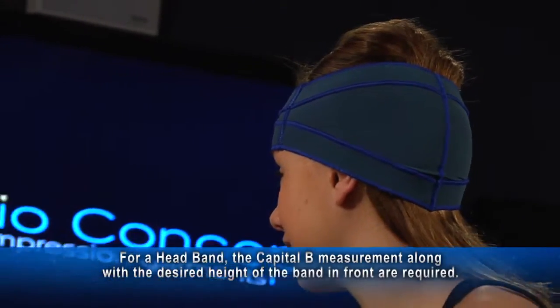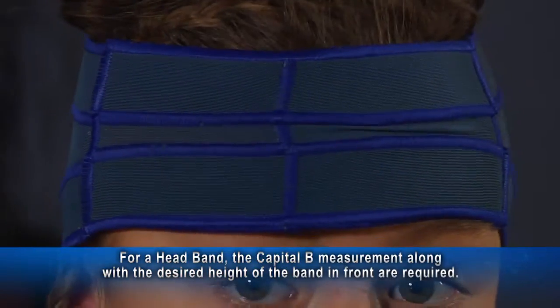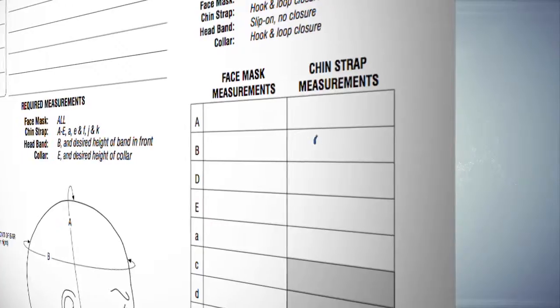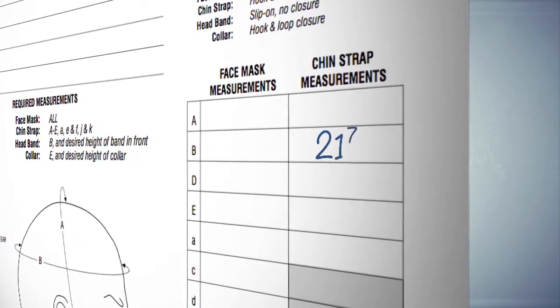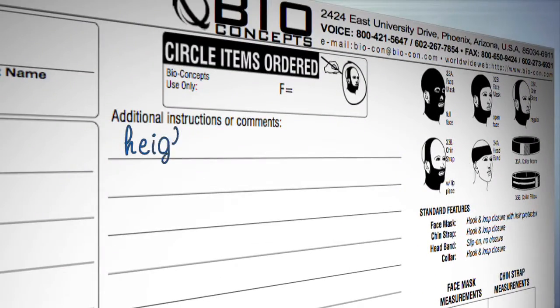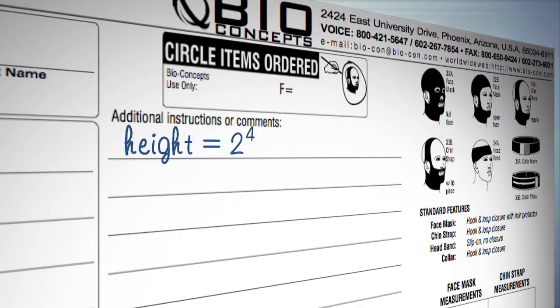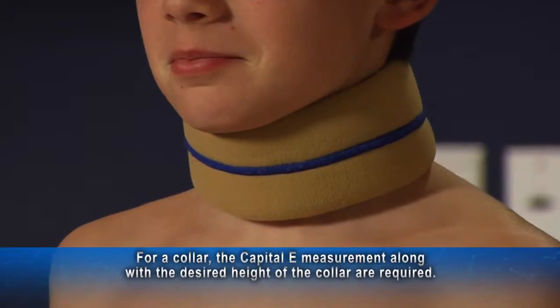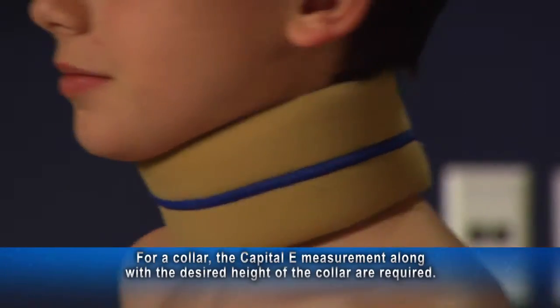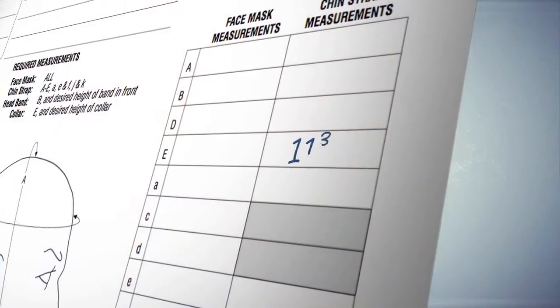For a headband, the capital B measurement along with the desired height of the band in front are required. Write B in the space provided on the form and write the height in the blanks for additional instructions. For a collar, the capital E measurement along with the desired height of the collar are required.